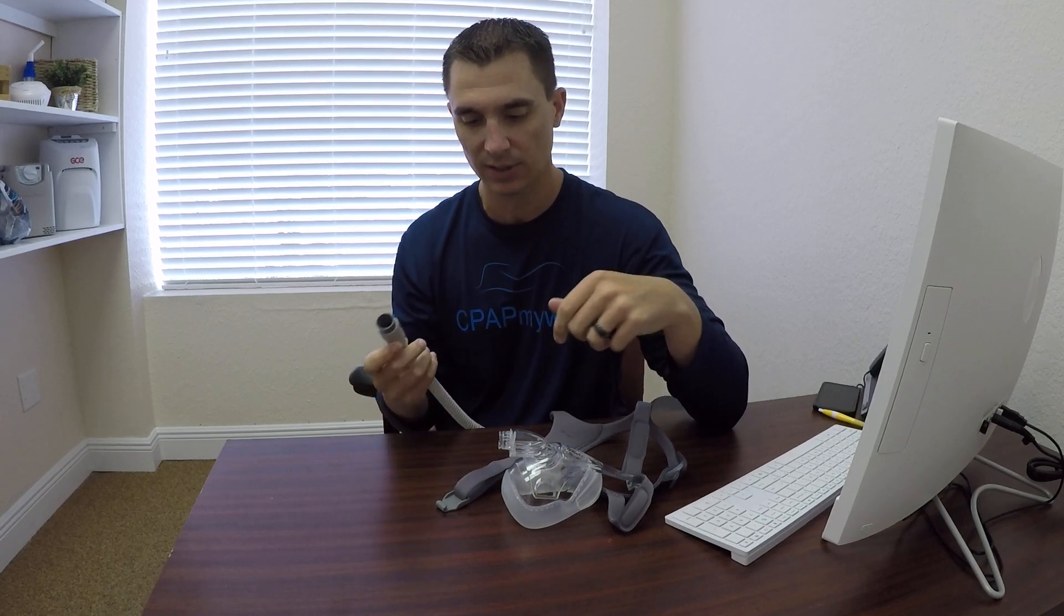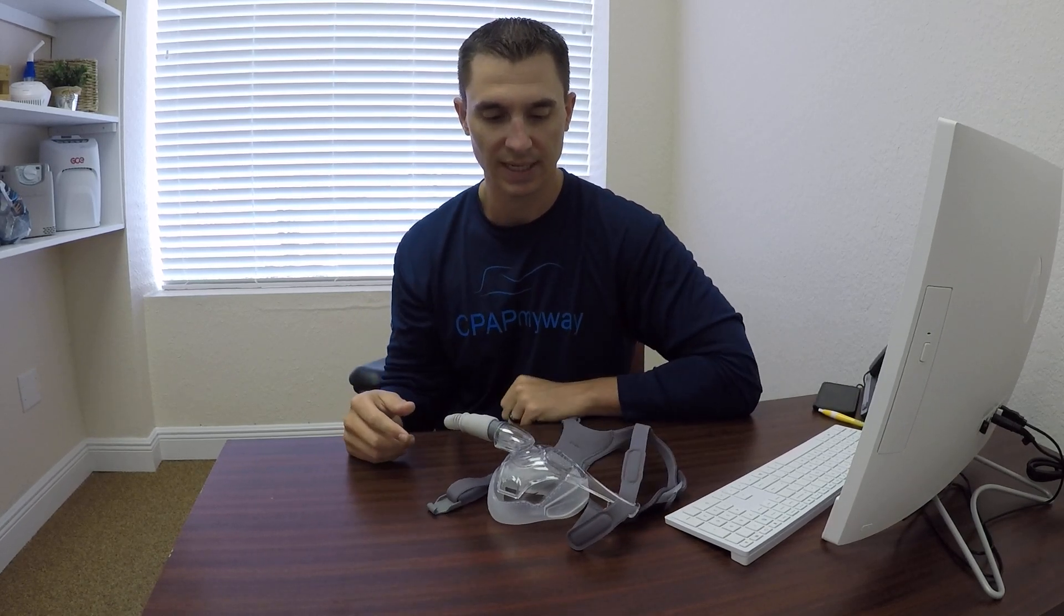It allows you to get up in the middle of the night if you're going to use the restroom or something without having to refit your mask. So keep the mask on, come back, reconnect quickly to your mask, and resume your therapy as you go back to sleep.